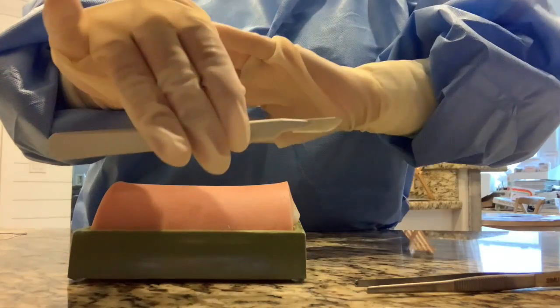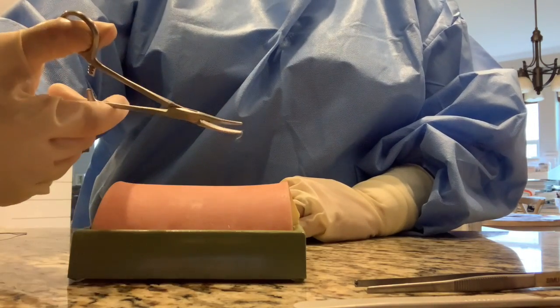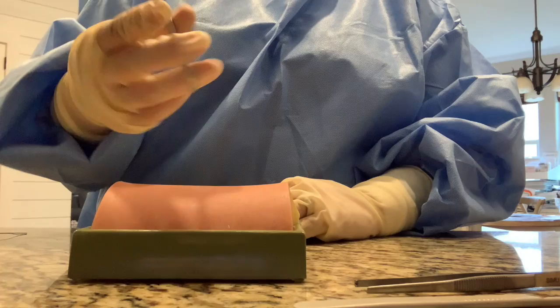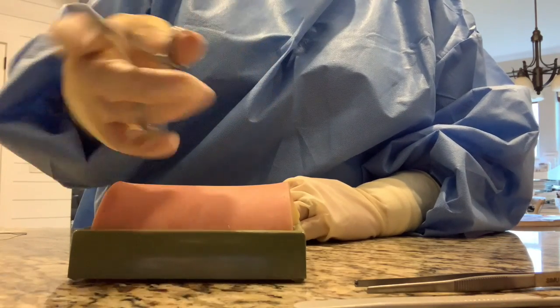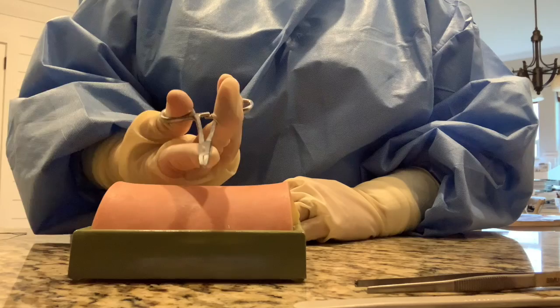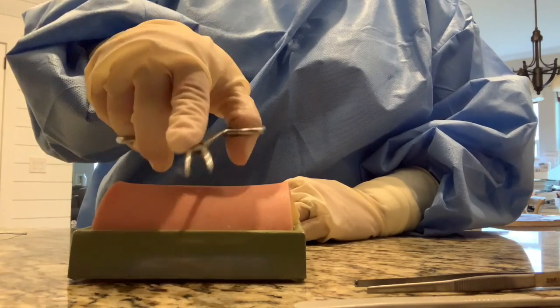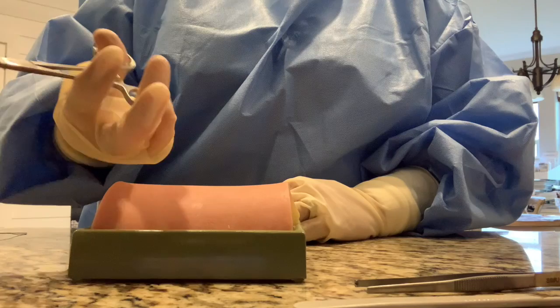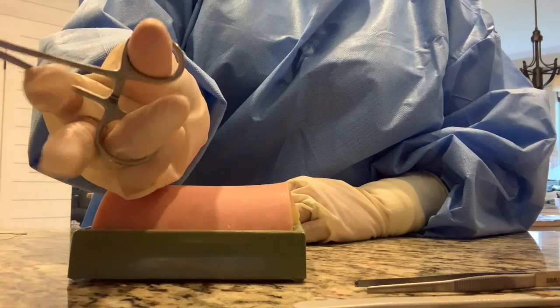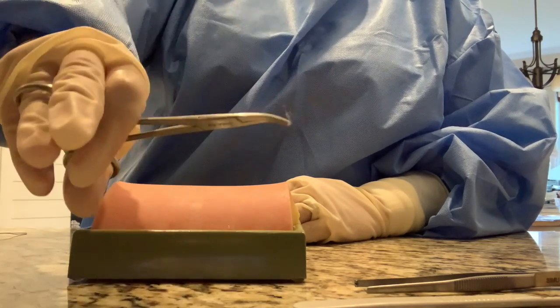This is a hemostat - a little mosquito hemostat. The way you grab this is you use your ring finger and your thumb, with your index finger to stabilize it, so you can easily pronate and supinate, rotate with the tip. You can have a stable grip when you need to go in and grasp. You just use a little bit of pressure and click to lock it.